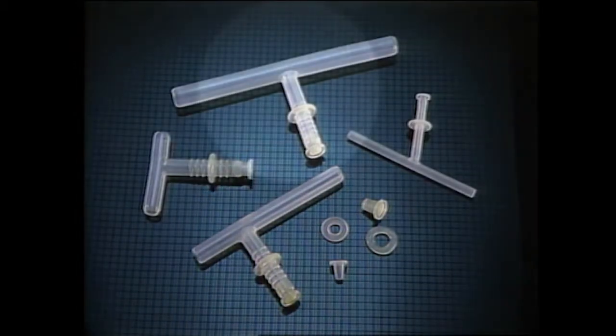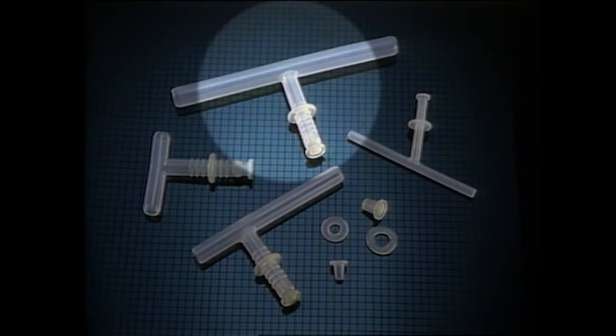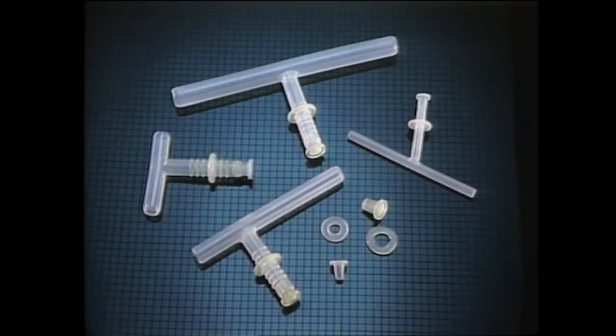The 6200 series extra long safety tubes are designed to provide the surgeon total freedom to customize the intraluminal limbs to any desired length, either at our facility or by using the CK1000 customizing kit. The extra long safety tubes offer solutions for distal stenoses and other problem cases while providing all the advantages of the safety tube features. In addition, two models of the Montgomery speaking valve are easily attached to allow vocalization without the need for finger occlusion.